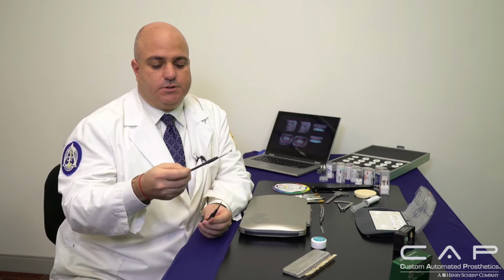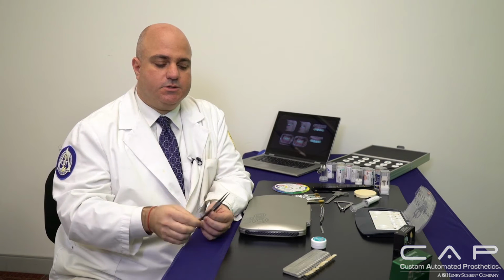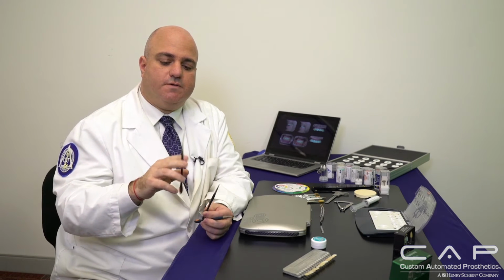This one, which is the thicker of the 2, you can actually place the neutral in the GC luster paste, and it's thick enough where you can run the brush and create texture along with it. So imbrication lines along the cervical going all the way up to the incisal edge. And then it goes from finer, where I then go ahead and place my colors in the process. And then finally, if I'm doing any occlusal stains or any highlights or hypocalcifications, any color that I put at the cusp ridges or the cusp tips, I use the finer brush.